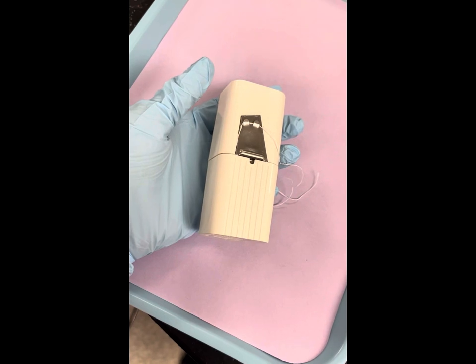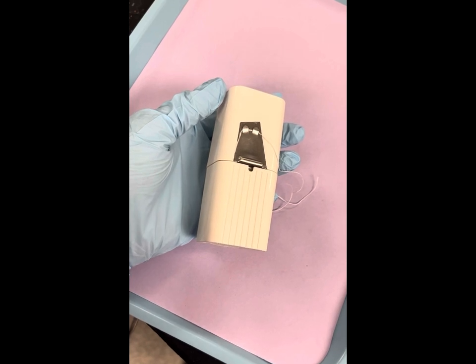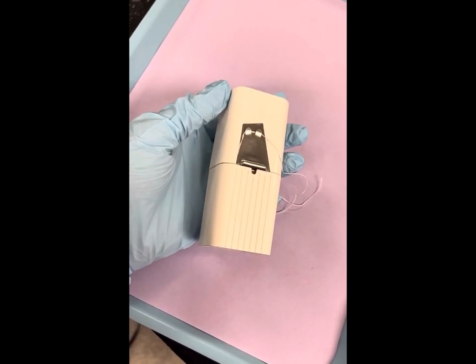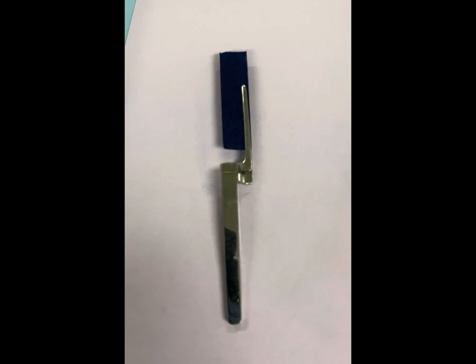You will add floss, and that is for every tray setup. It is used for cleaning the interproximal surfaces of material, food, or anything stuck between the teeth including plaque. This will be the articulating paper holder and paper used to take the bite after the procedure is done.